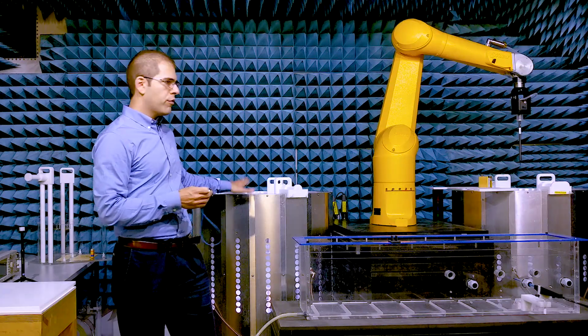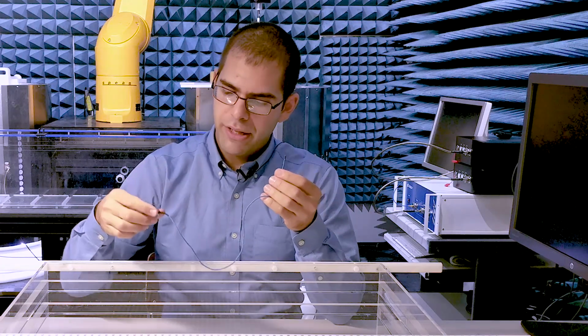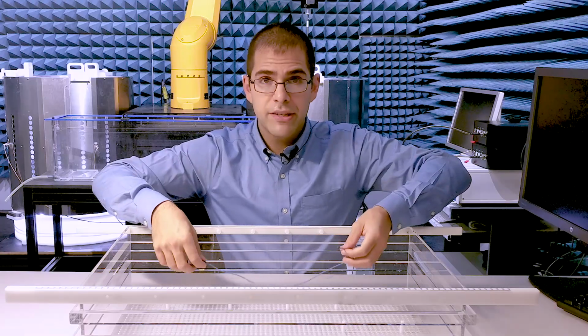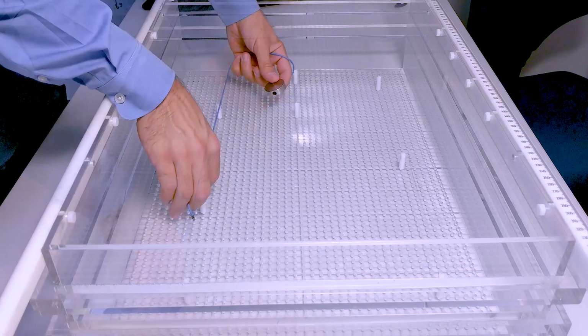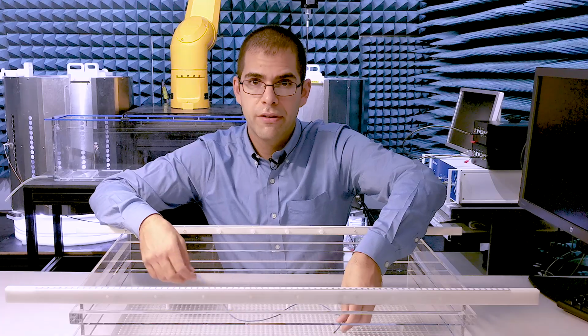I'm going to be doing the measurement at 64 megahertz, but you could do it at 64 or 128 with the MITS 1.5 or the MITS 3T. Traditionally, people validate the model of their implant response by mounting the device inside a phantom such as this ASTM phantom and physically varying the routing of the lead in order to change the incident field conditions. Many routings are necessary in order to achieve sufficient diversity of the incident fields.